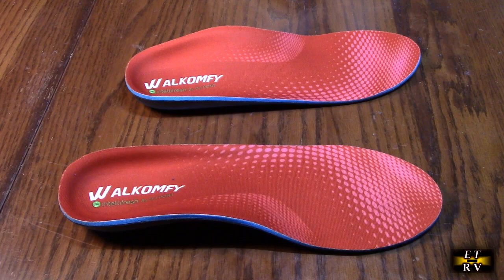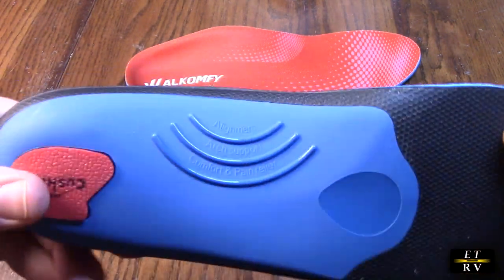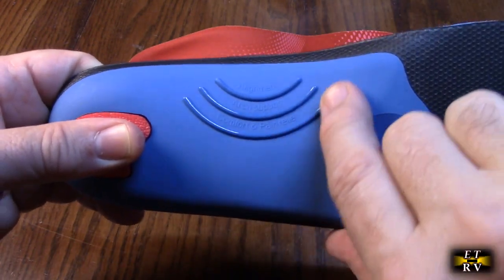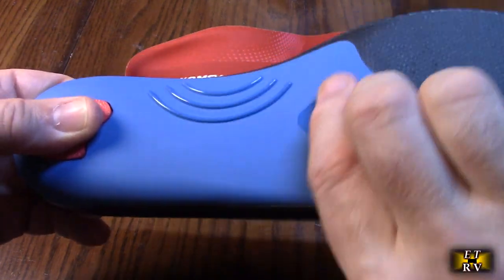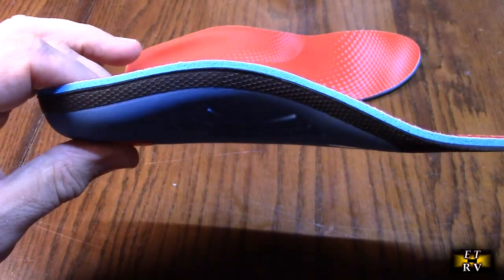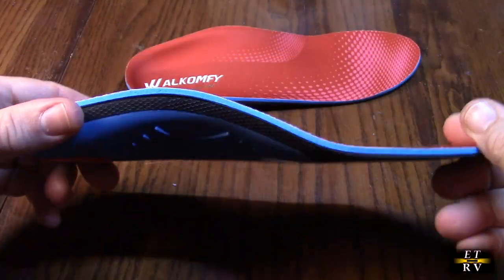Let me show you what they look like close up. They have a large arch support on there. On the bottom there's a cushioned area, and a section of plastic that distributes forces outward, which is nice. This little piece here also does something with forces in a circular pattern. The arch is visible and they're nice and soft but a really durable material.